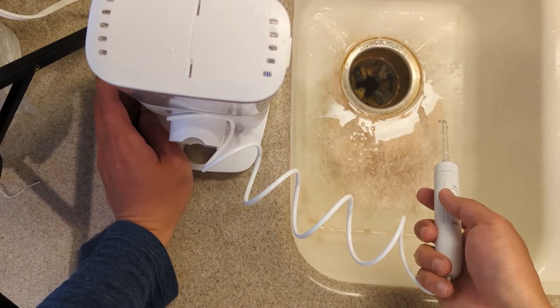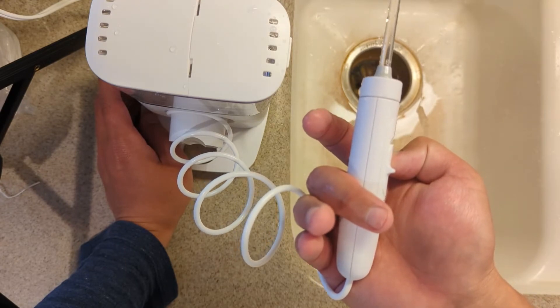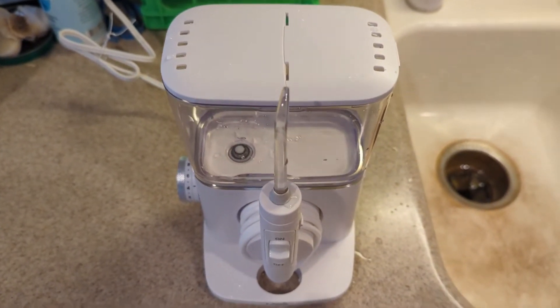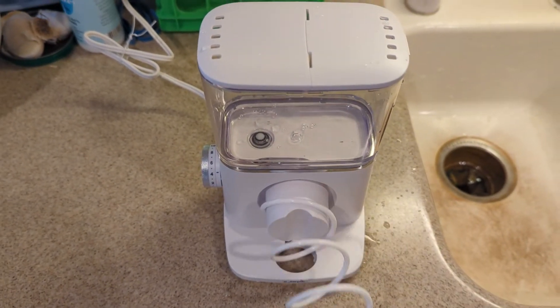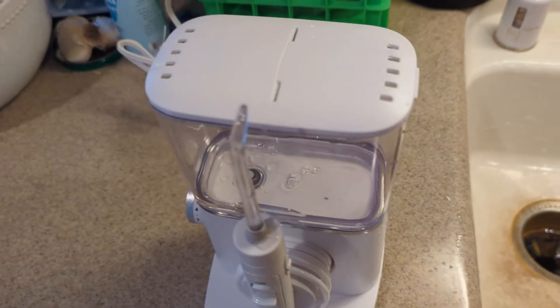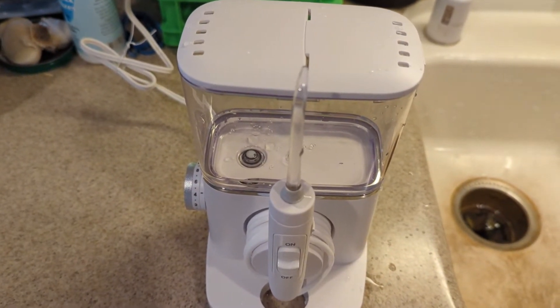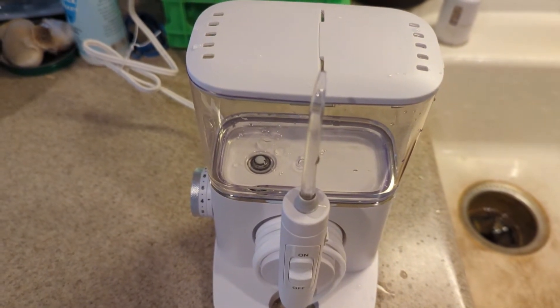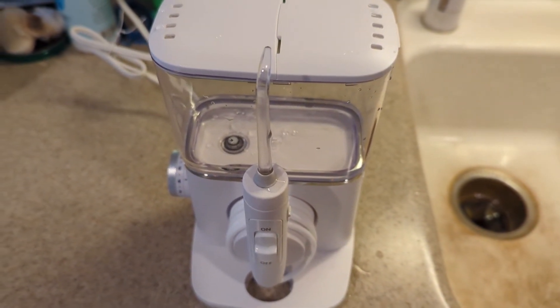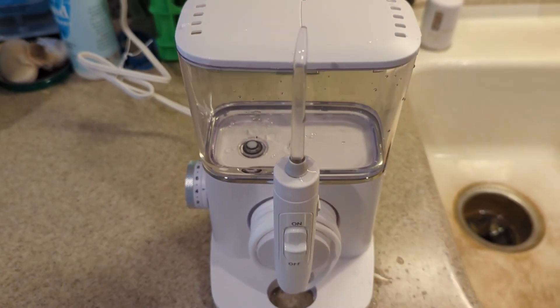I don't know if I'm going to like it or not, but it works really well. It can make a mess — you see it's water all over already, so I'm not sure how practical it is. I've tested this a few times at this point. It pushed almost all the food out of the gaps. I don't think it entirely replaces flossing, but it's a useful tool when you're in a hurry. In general, I would still brush and floss and then use the water pick — it's pretty fun.